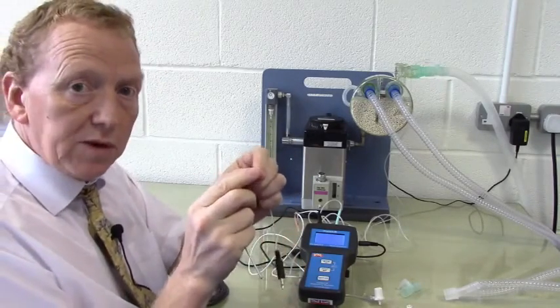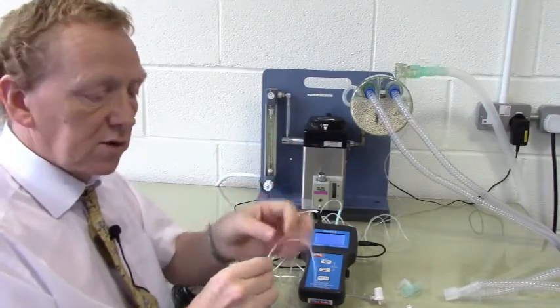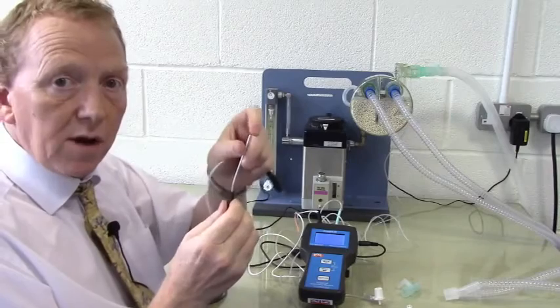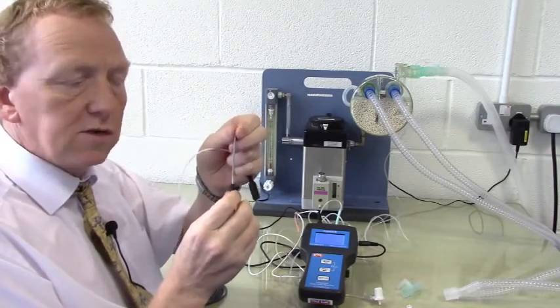This here is 1.2mm diameter, suitable for use in mice, budgerigars and small animals. The larger one is suitable for use in bird crops or rectally in reptiles, and has a round smooth dome end to prevent damage when inserted.